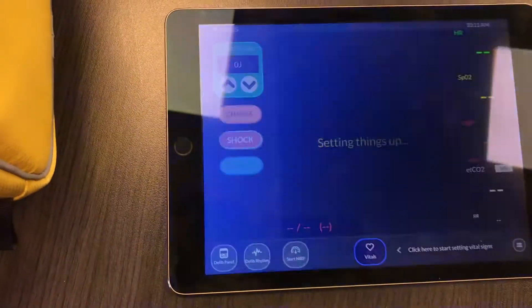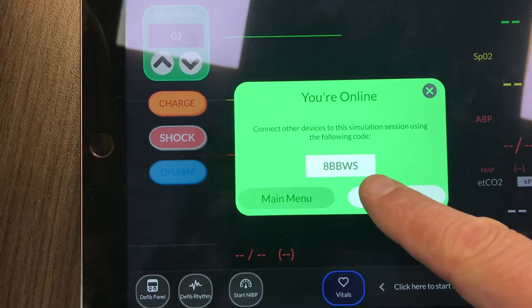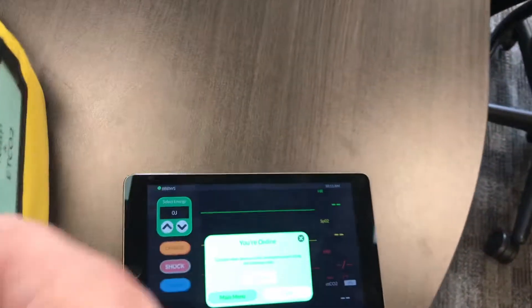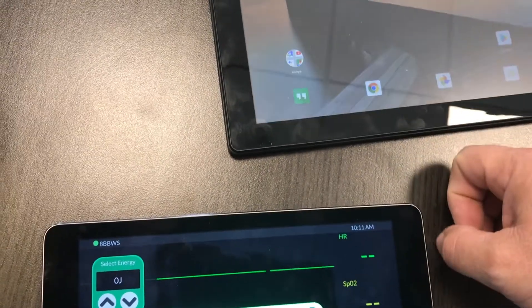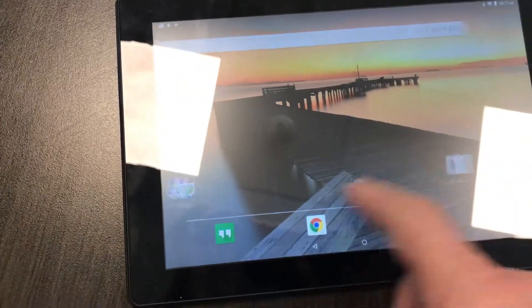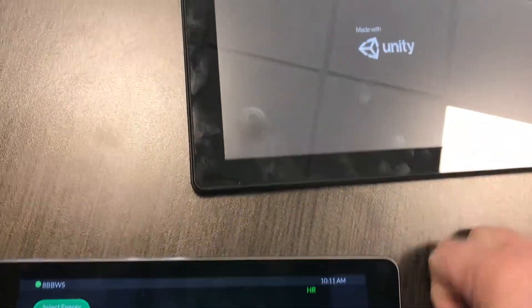You're going to see two options: Start Simulation and Join. If you have the instructor pad, you want to start it — it'll give you a code. This one's 8BBWS. They are case sensitive, just keep that in mind. Grab the other iPad, open up the app on that one as well. Please note that you need to be on Wi-Fi. These are set up to attach to the NFD Wi-Fi; if it doesn't connect, just go ahead and manually type that in.